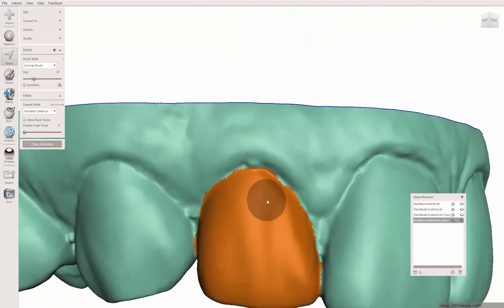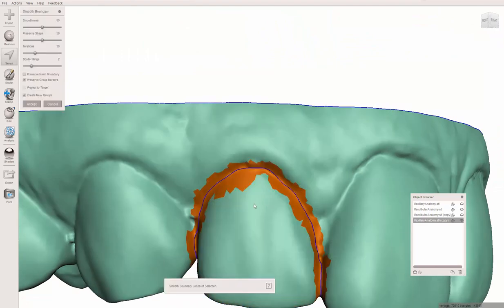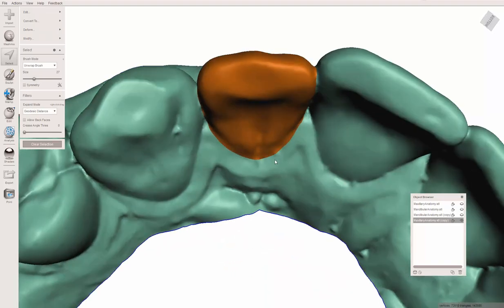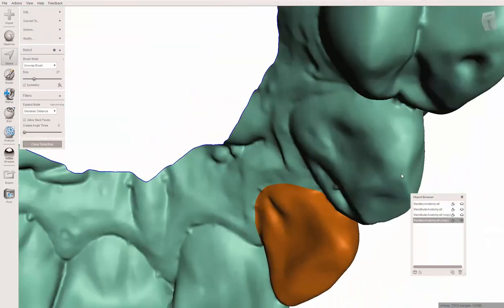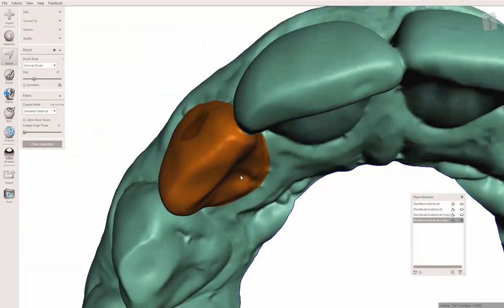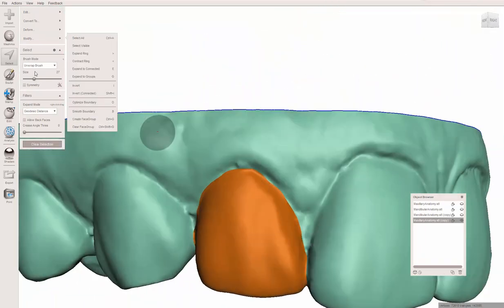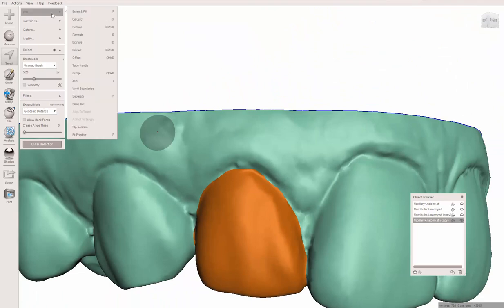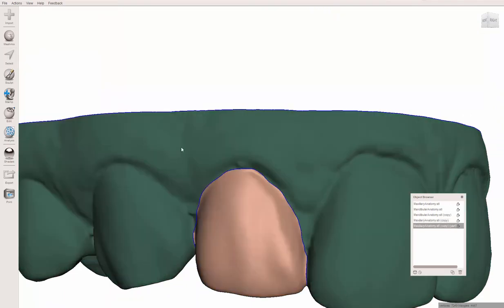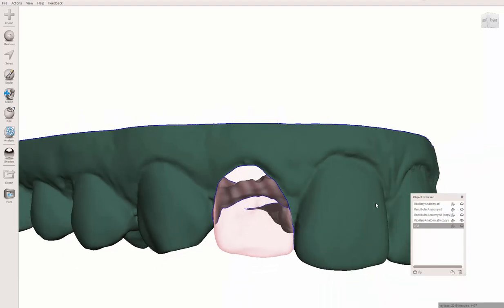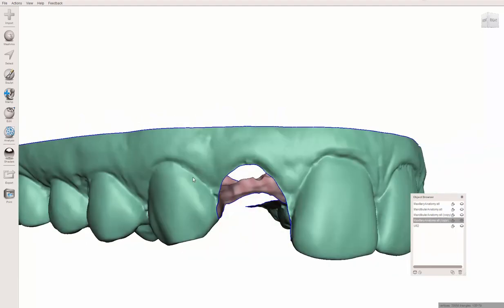So that tooth is selected. I've said in other videos, I like to smooth it out, so I hit the B button to smooth the boundary. Just hit accept, it gives me a nice smooth segmentation. Now I'm going to hit the Y button, which is the same thing as separate, which is under the edit tool menu.